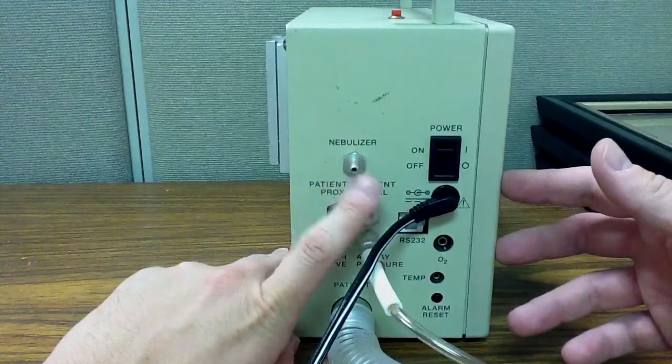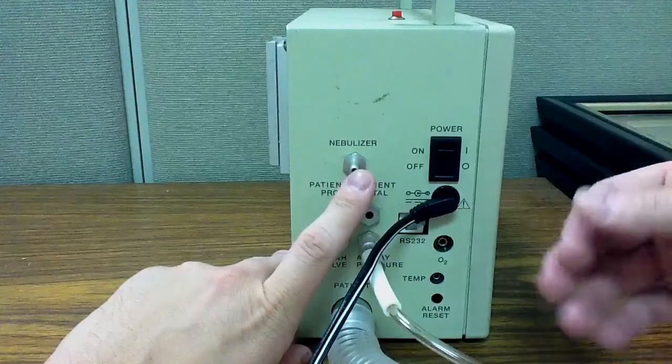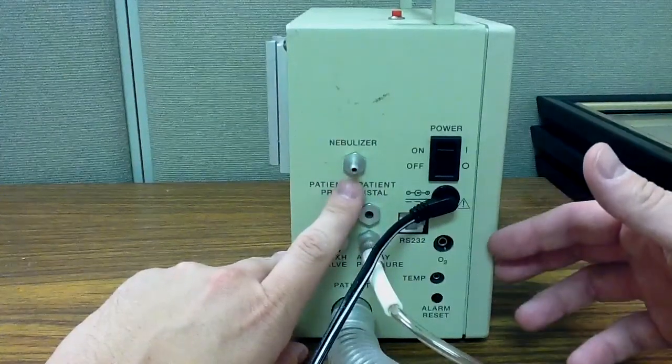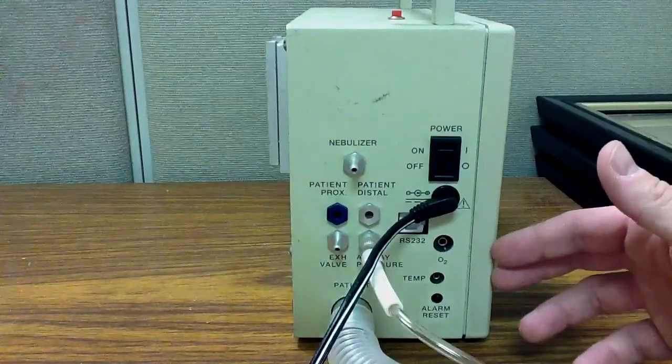Like some ventilators, when you attach a nebulizer in line, it's continuous, just like a regular breathing treatment. If you give somebody an updraft nebulizer, they put it in their mouth and it continuously flows at 8 liters a minute or wherever you set it at.